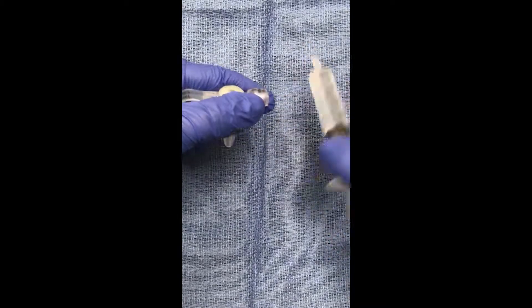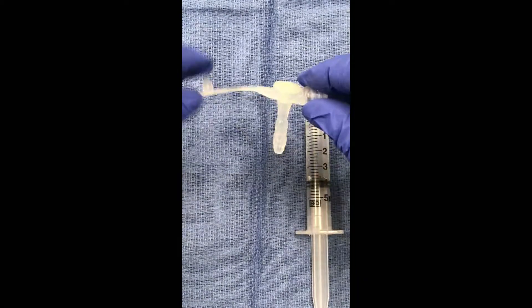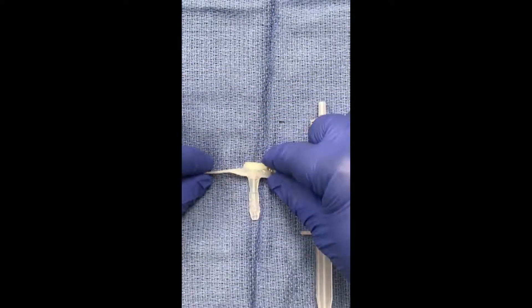With a slight twist, remove the syringe and now you've completed evaluating the balloon of your brand new G-tube.